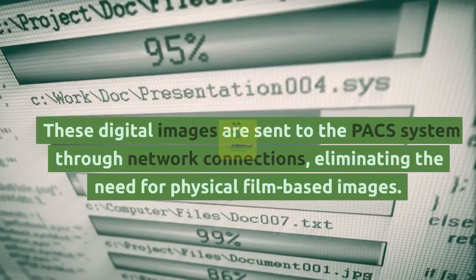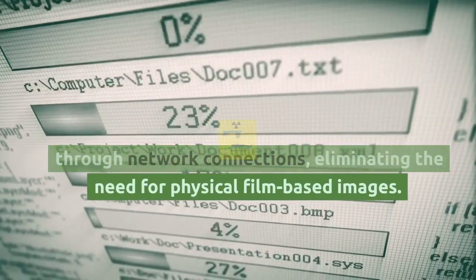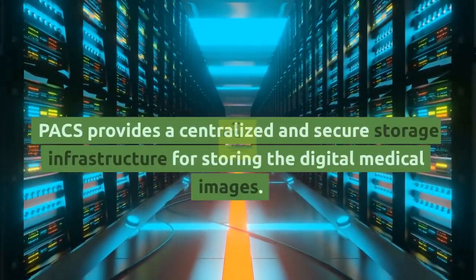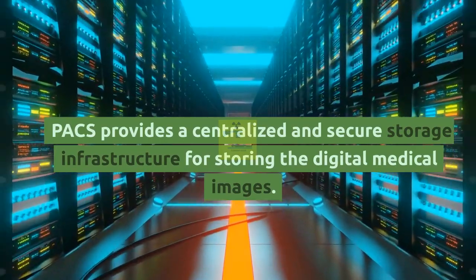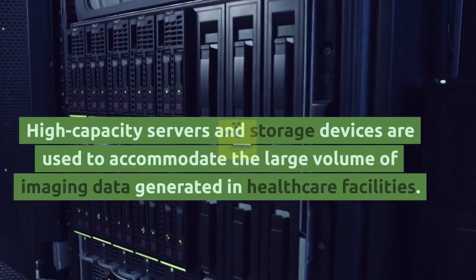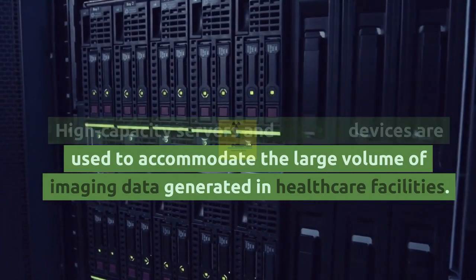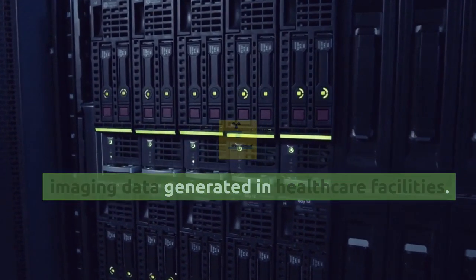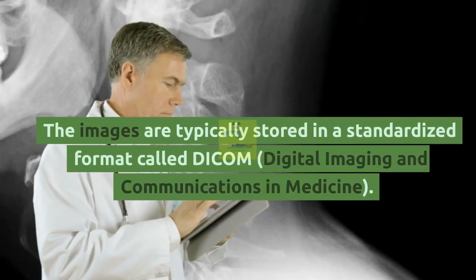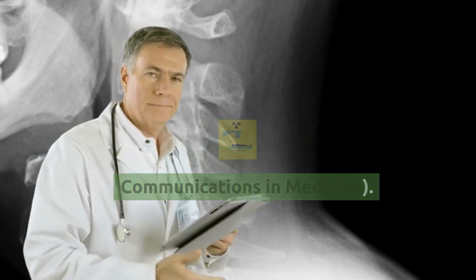These digital images are sent to the PACS system through network connections, eliminating the need for physical film-based images. Image Storage: PACS provides a centralized and secure storage infrastructure for storing the digital medical images. High-capacity servers and storage devices are used to accommodate the large volume of imaging data generated in healthcare facilities. The images are typically stored in a standardized format called DICOM, Digital Imaging and Communications in Medicine.